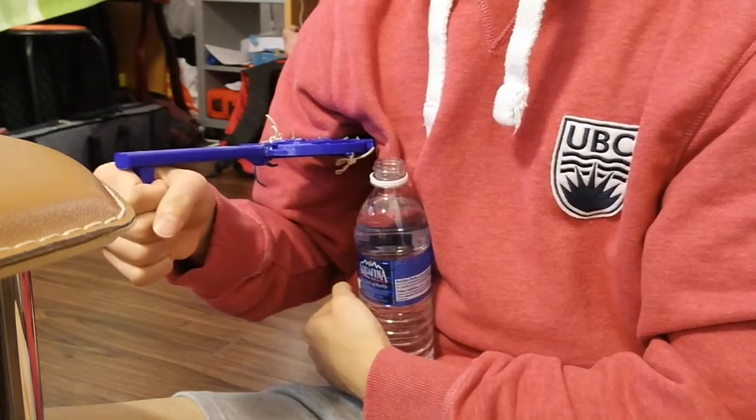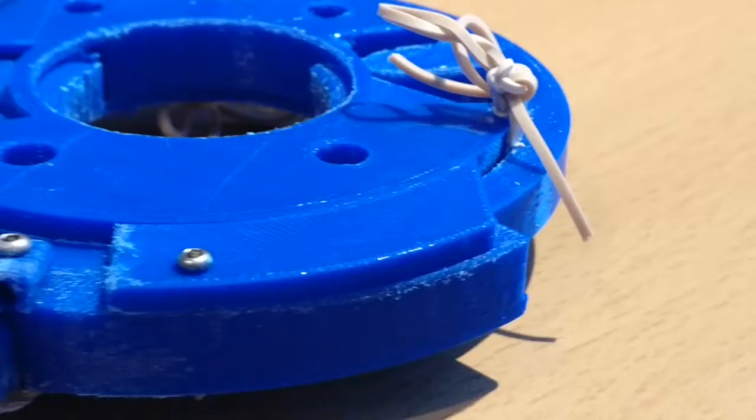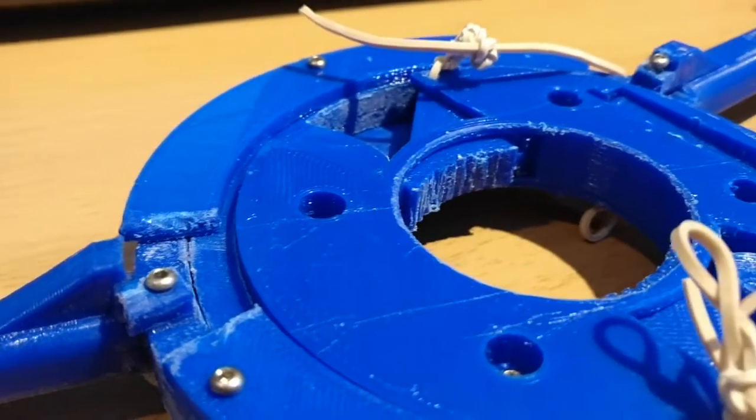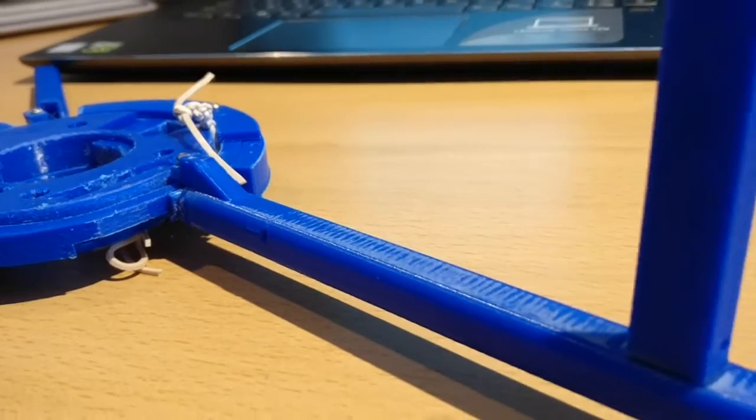Additionally, this device works on bottle caps of any size. Barewing eliminates the heavy requirement of hand and wrist muscles to open bottle caps, allowing Ken and many others to engage in everyday tasks without worrying.